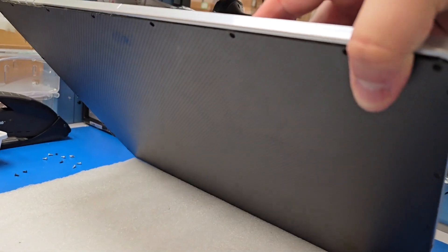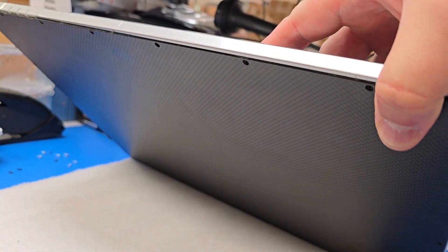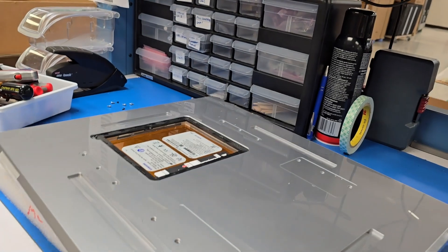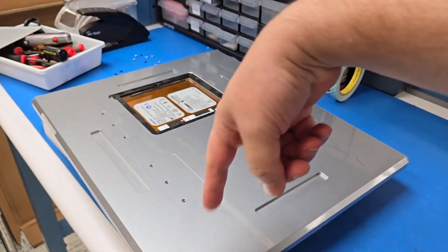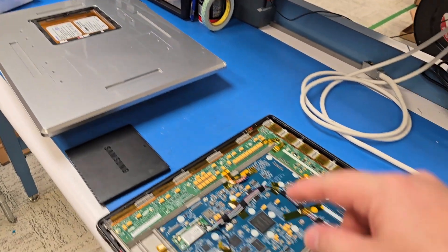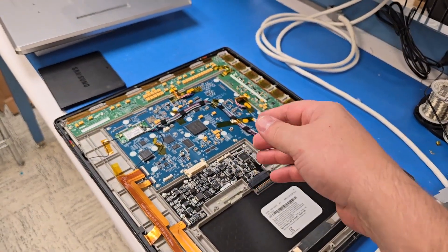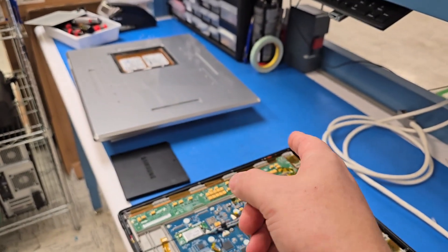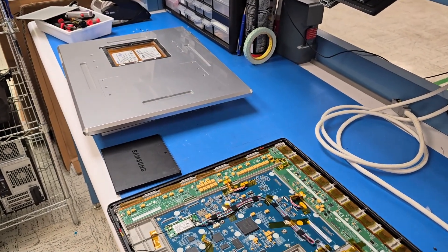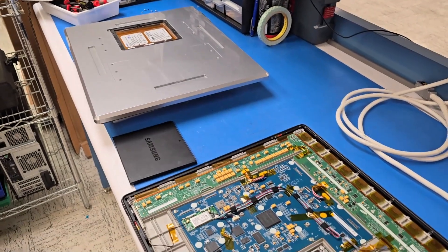Here you can see the detector panel — it's got a carbon fiber, radiolucent front side, and that's the side that the image hits on. There's also an array of detectors inside. The detectors on the older board actually have a larger diameter than on the new one, and I don't know if that means they have more detectors — that would probably mean more sensitivity.